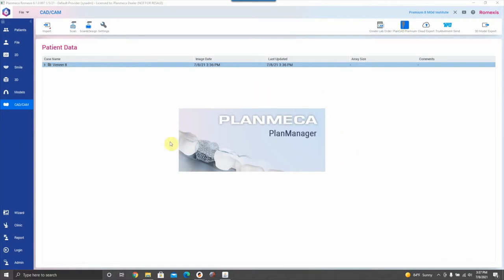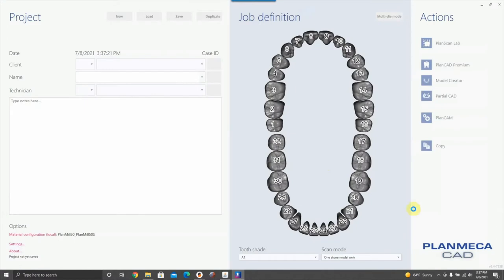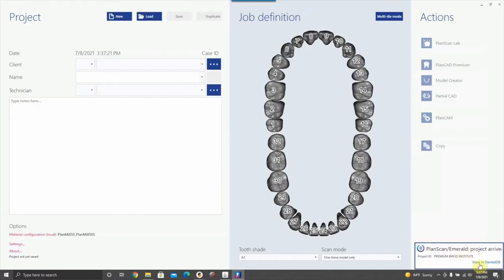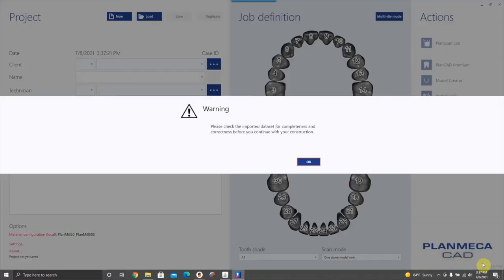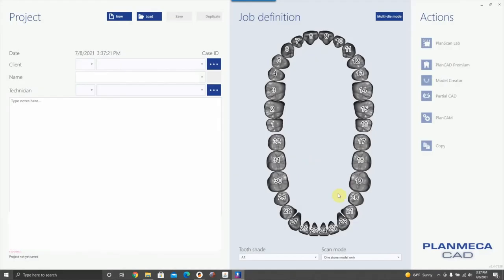Here's the tricky part: a little window pops up at the bottom right with a little pink icon link. You've got to click View and Dental Database and click OK. It's only up for a few seconds, so if you miss it, you're done — you have to redo the entire process.